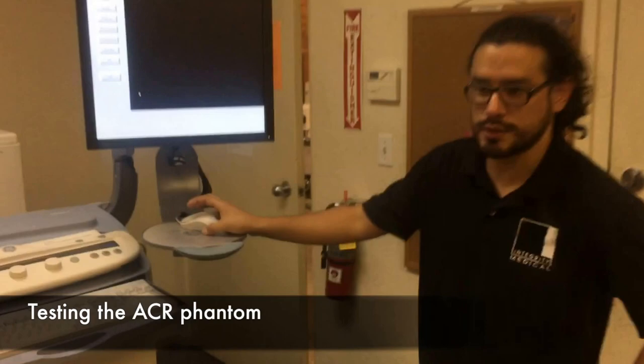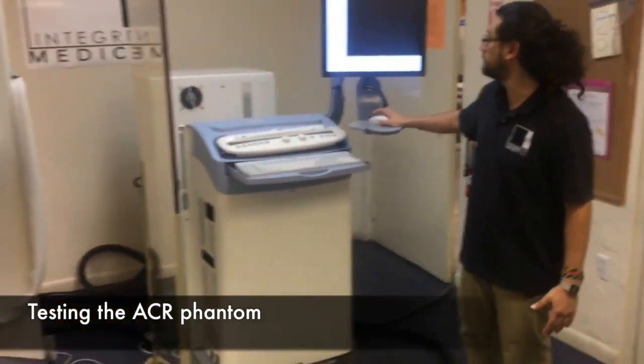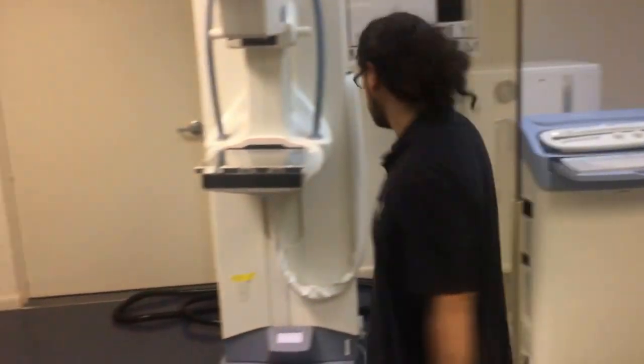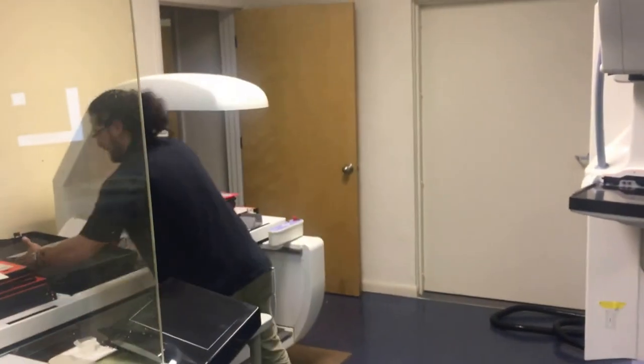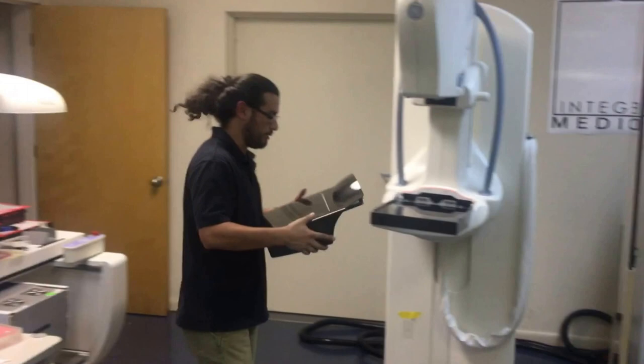Now what we're going to do is test the ACR Phantom, which is also part of the quality control. I'm also going to show you how to adapt the Bucky and the compression paddles.